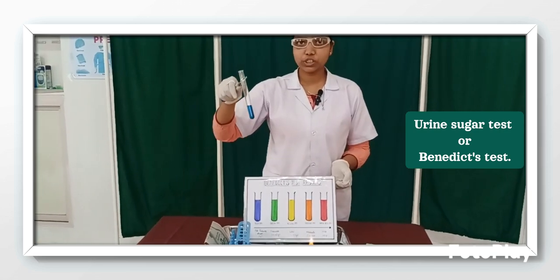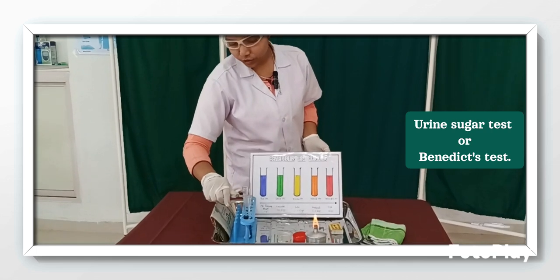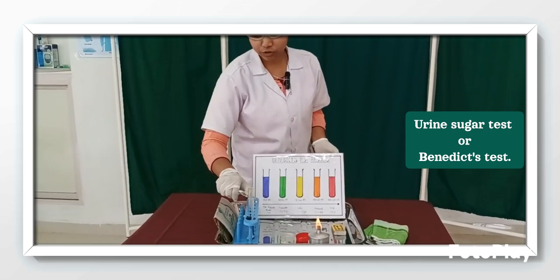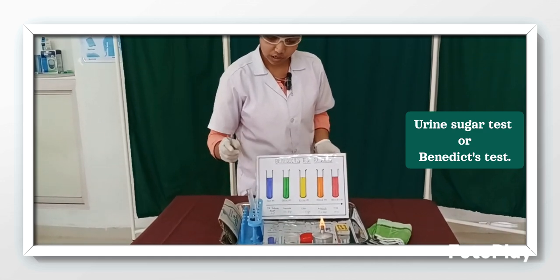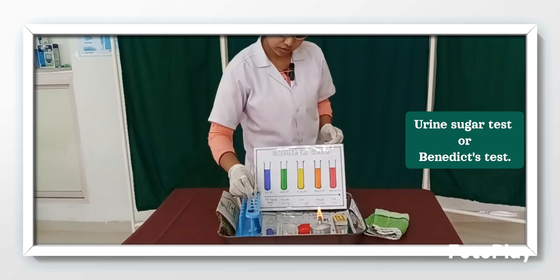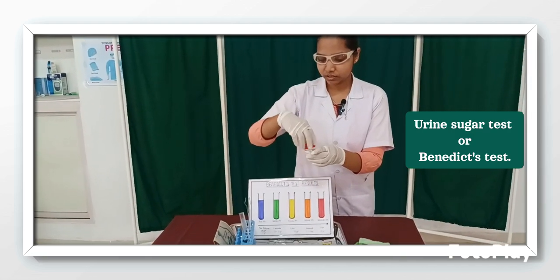Now you can see there is no change in color. So I am going to put it in the test tube stand, and I am going to take out the test tube holder, and I am going to place it in the test tube stand. I am going to close the lid of the urine container.